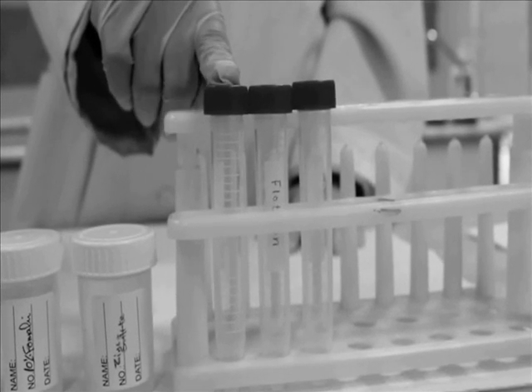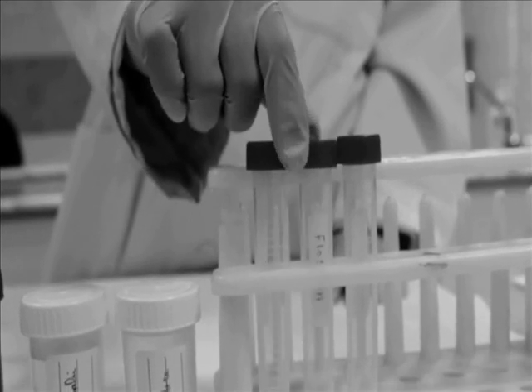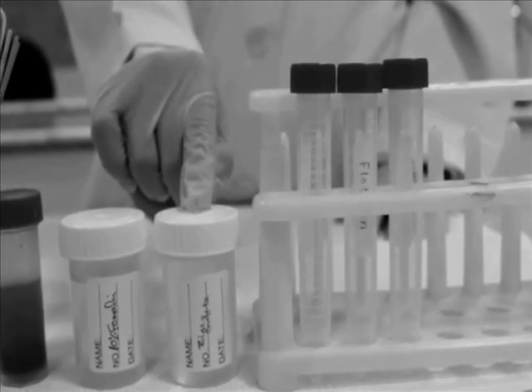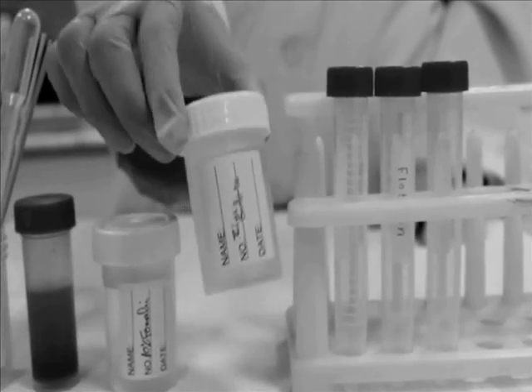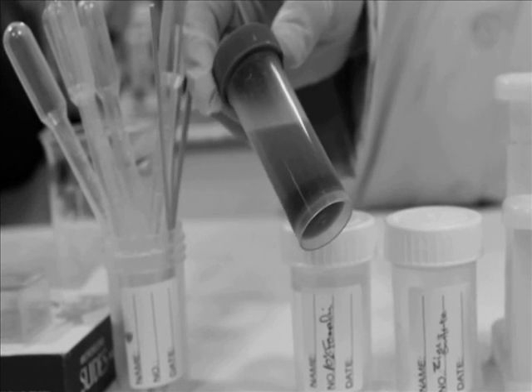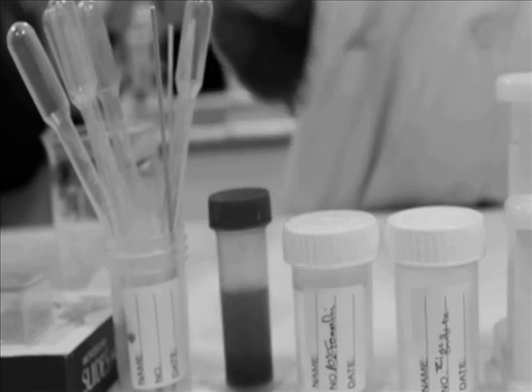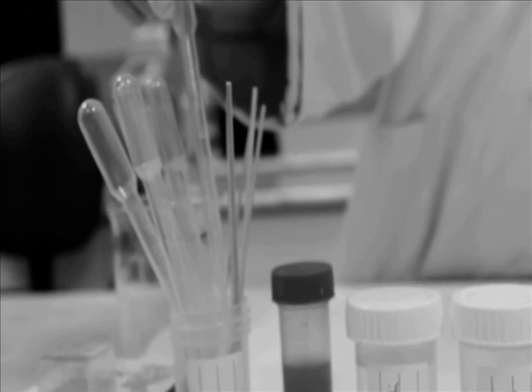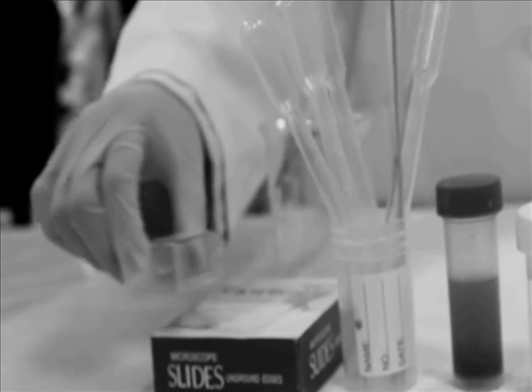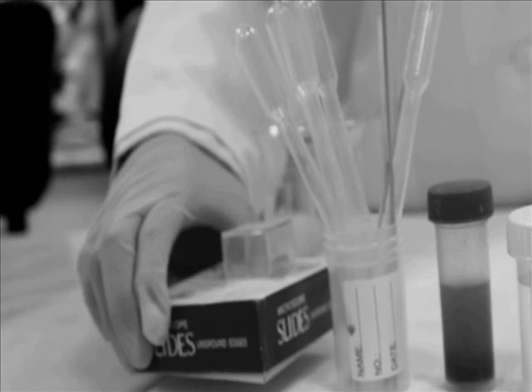The materials that we need: graduated centrifuge tube, zinc sulfate solution, fresh stool sample, plastic pipette, cover slip, and microscope slide.